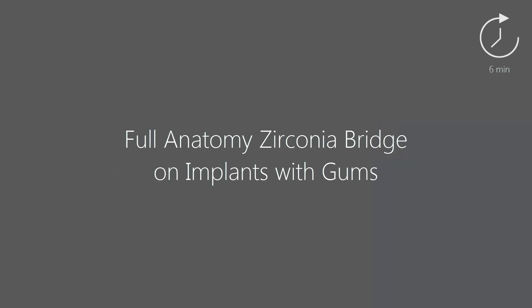In this video we will show you how to design a full anatomy zirconia bridge on implants with gums.